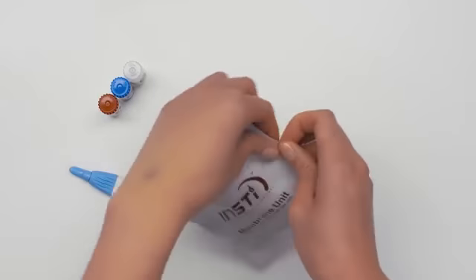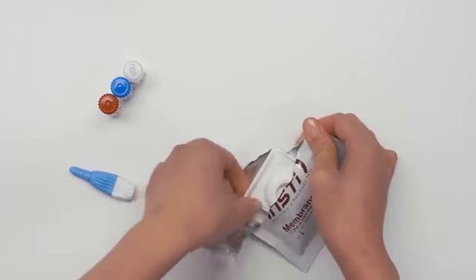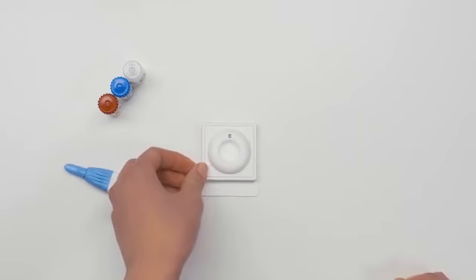When you're ready to start, open the test device pouch. Place the test device on a flat surface.